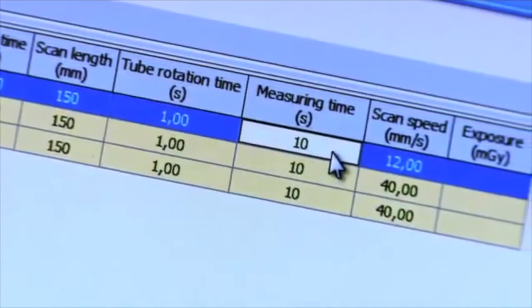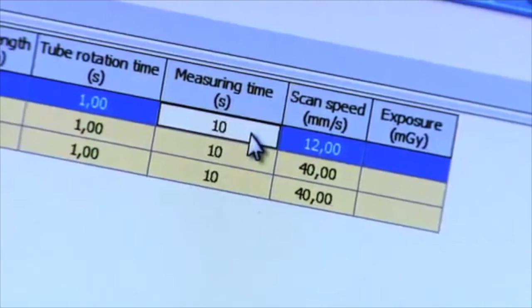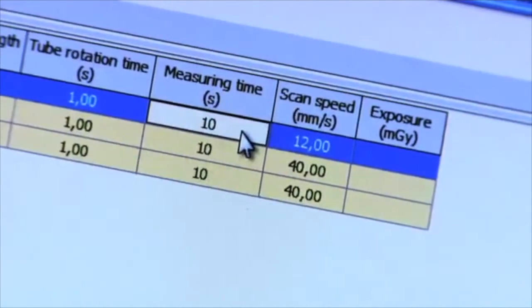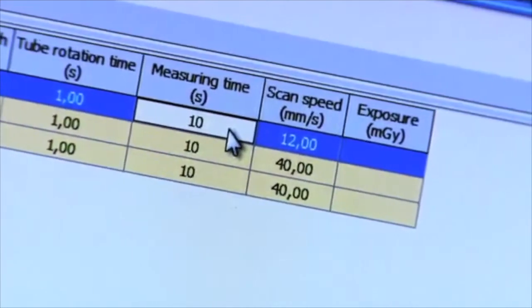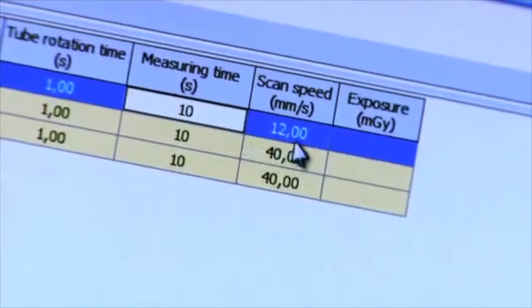Measuring time. This could take slightly less time for free in-air measurements as the dose profile is not that wide, and you get a better resolution in the waveform if you capture the dose profile with a shorter measuring time in Ocean compared to the exposure time in the CT.